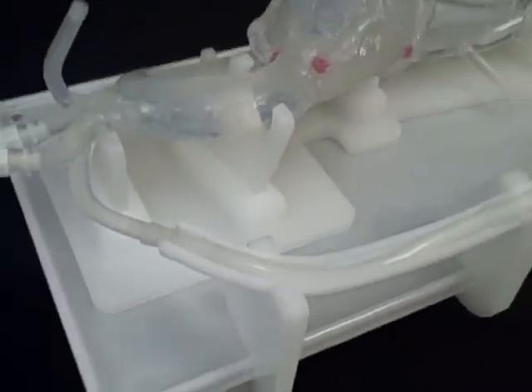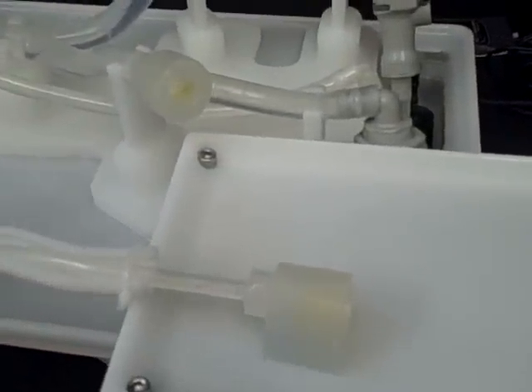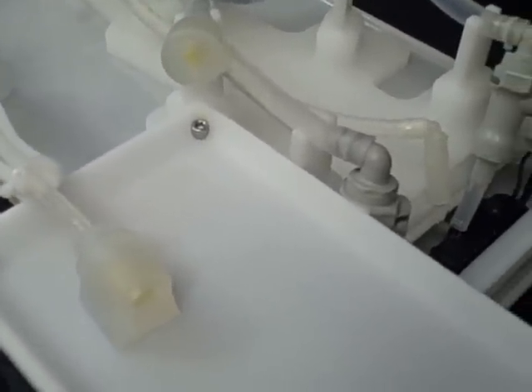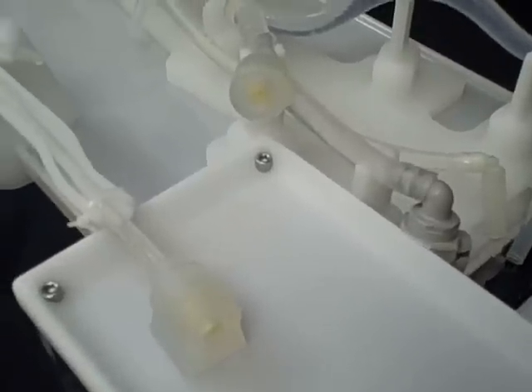This particular model also has a radial attachment and a radial access point. These ends are valved so either a guiding catheter or a sheath can be introduced through these seals.